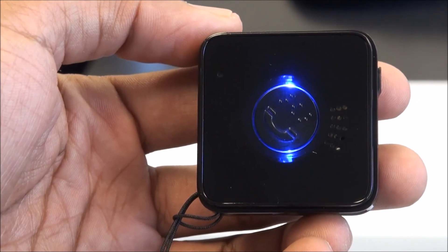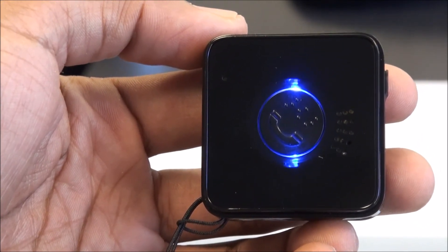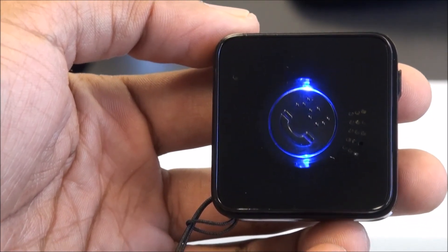Hello, this is MedScope America. Mr. Miller, do you need help? Hello, my name is Derwin. I'm an installer with MedScope. My password is Scope1, and I'm testing Mr. Miller's PERS unit. Can you please verify the consumer's full name, address, and telephone number, please?